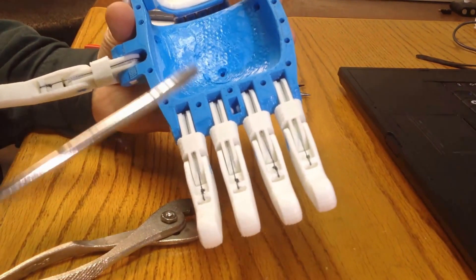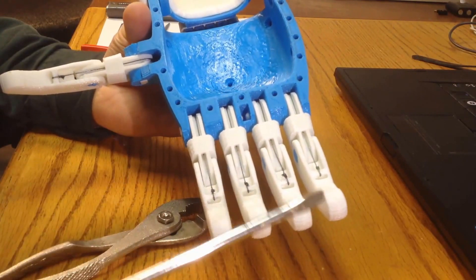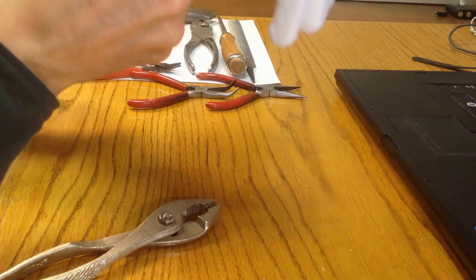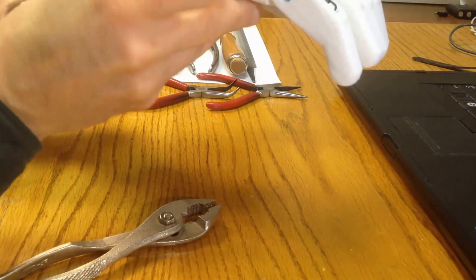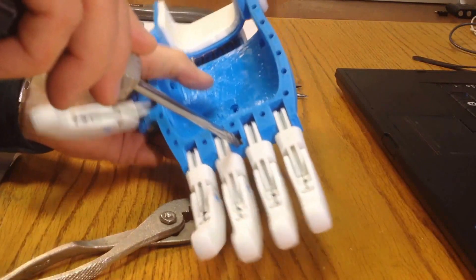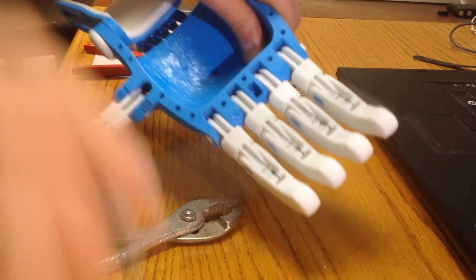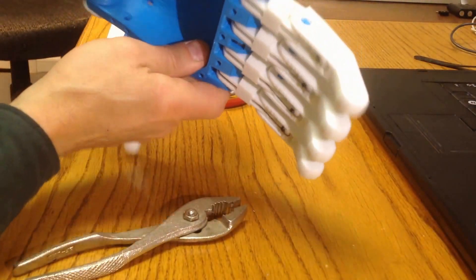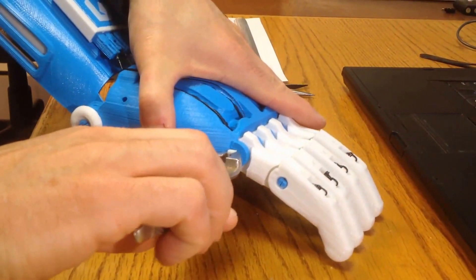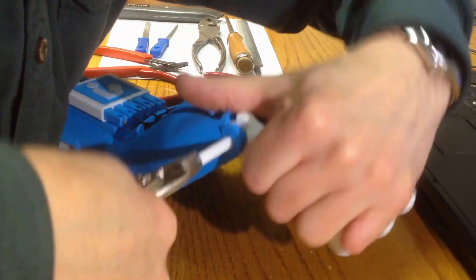You can get in with a suitable tool, like a flat-bladed screwdriver, and push the pins out. I'm going to start with taking this pin out — I'm not happy with the way that proximal in the knuckle is bending. I'm going to go in and leverage that pin and push. Just with a little push, I've managed to push it out enough to be able to get the pliers on. I'll grab it — and there we go, it's out.